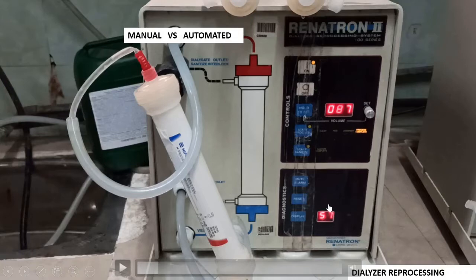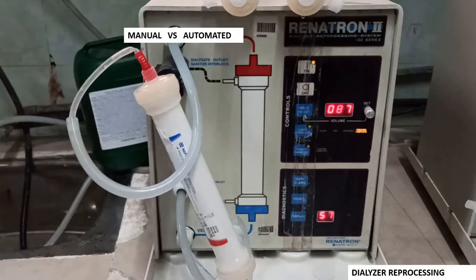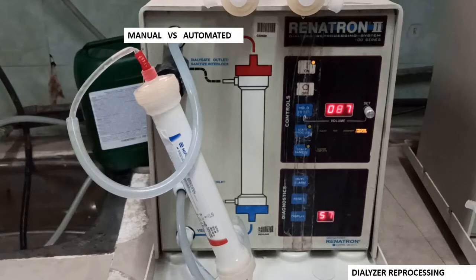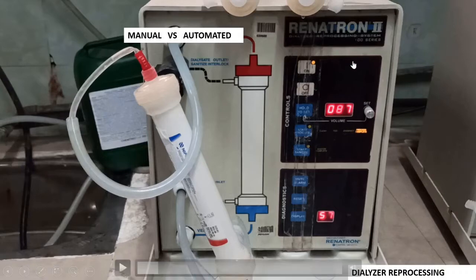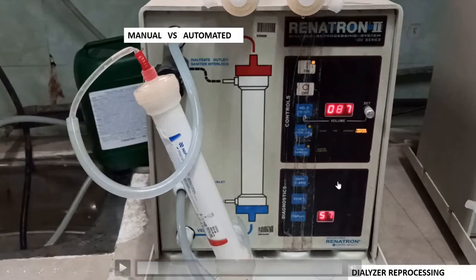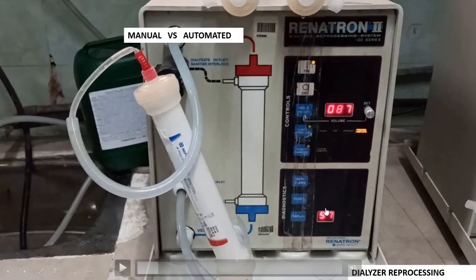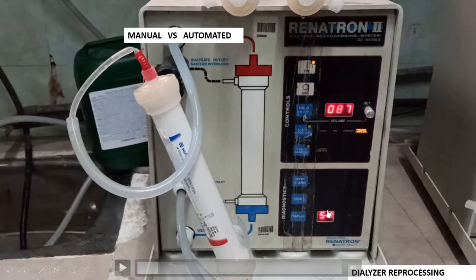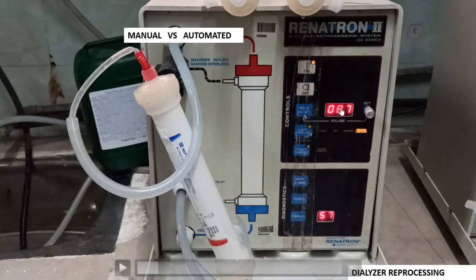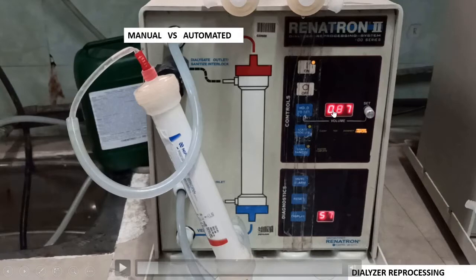There are a total of 57 steps involved in the process of cleaning, testing, and disinfecting. These steps can vary from machine to machine. In this Renatron machine in our unit, there are 57 steps. Once 57 is blinking, that means the process is complete. This is regarding the fiber bundle volume.